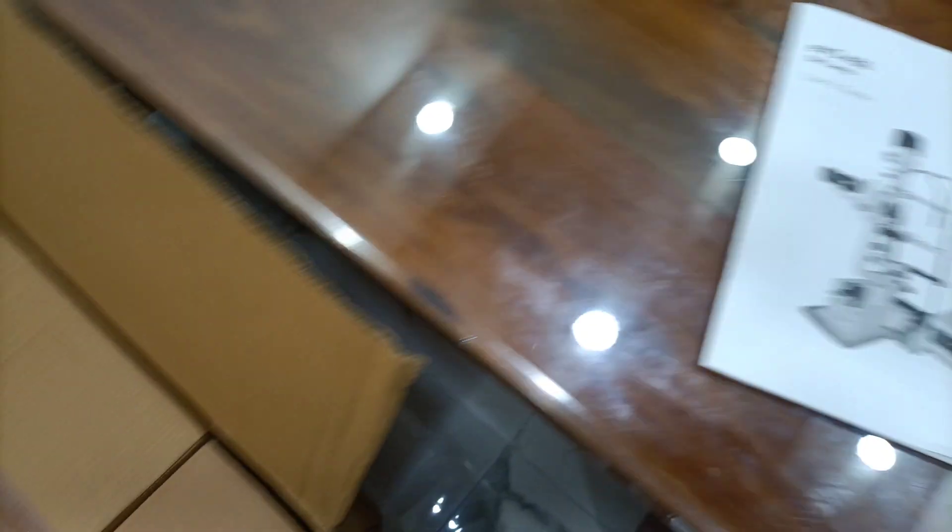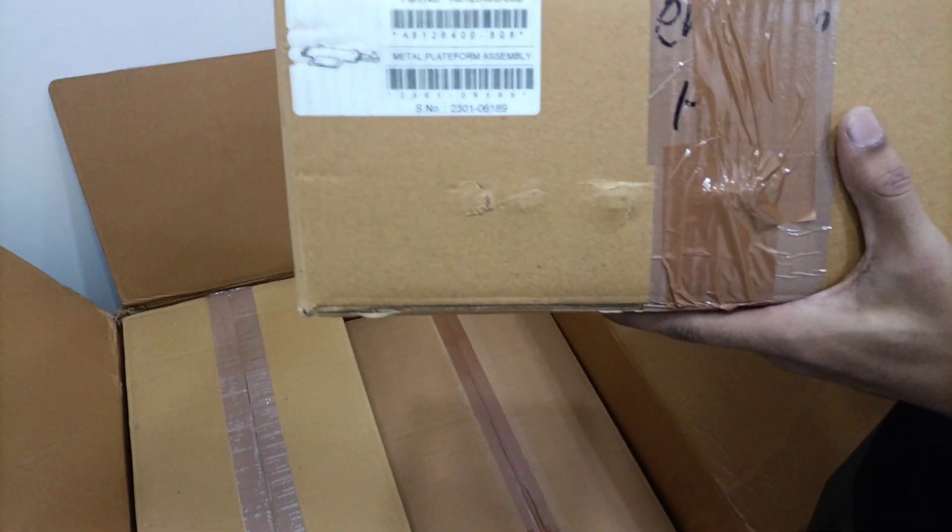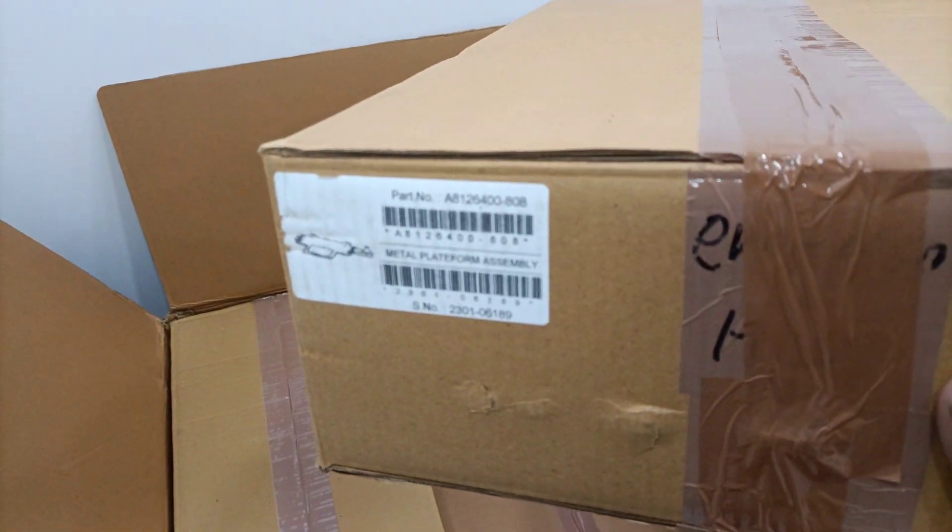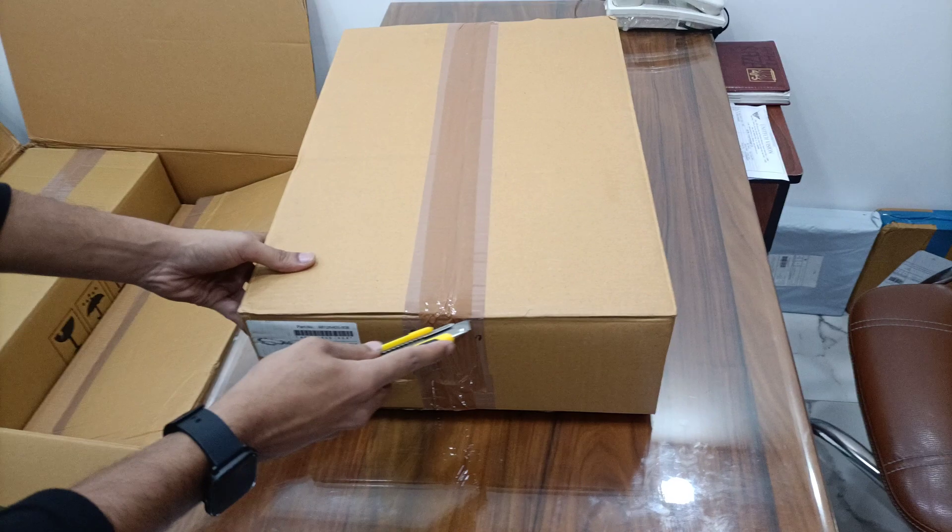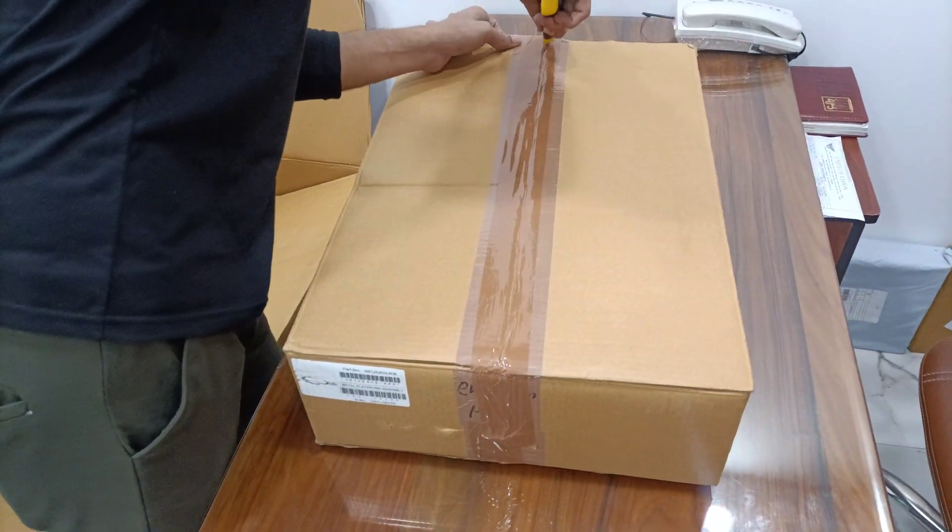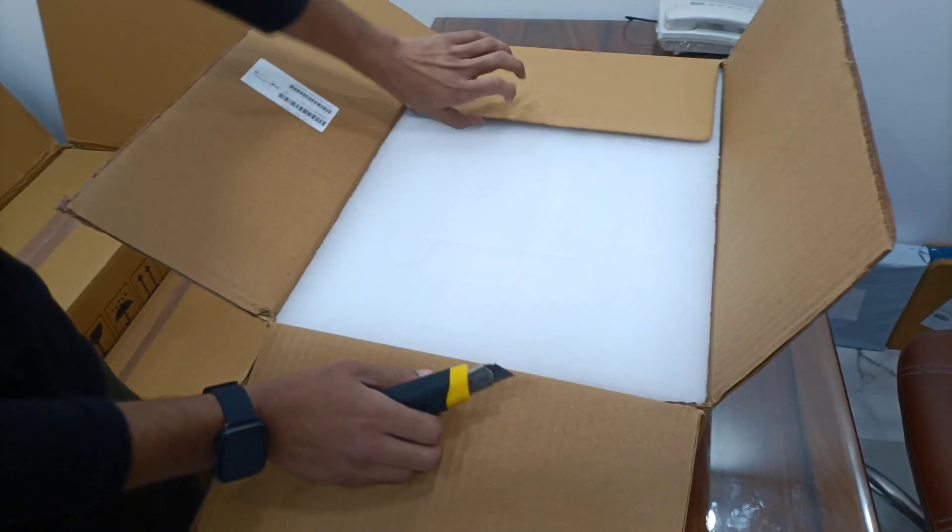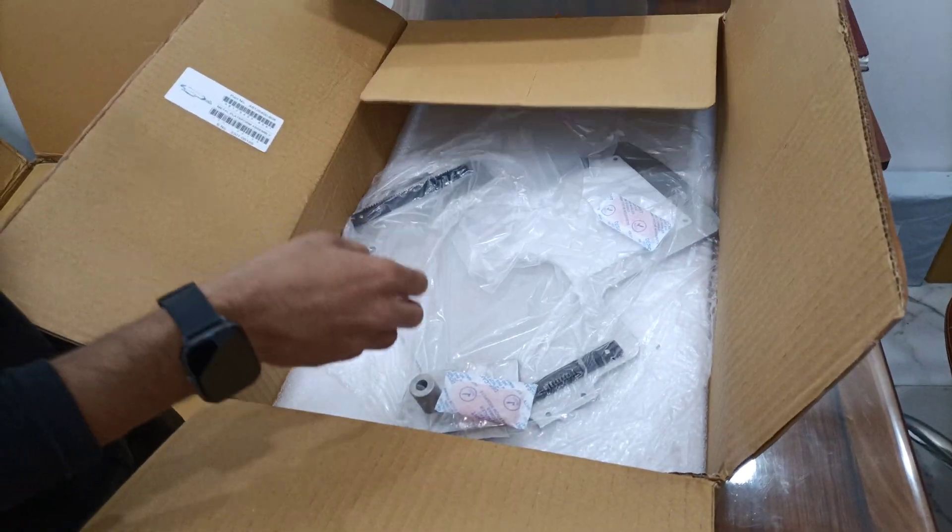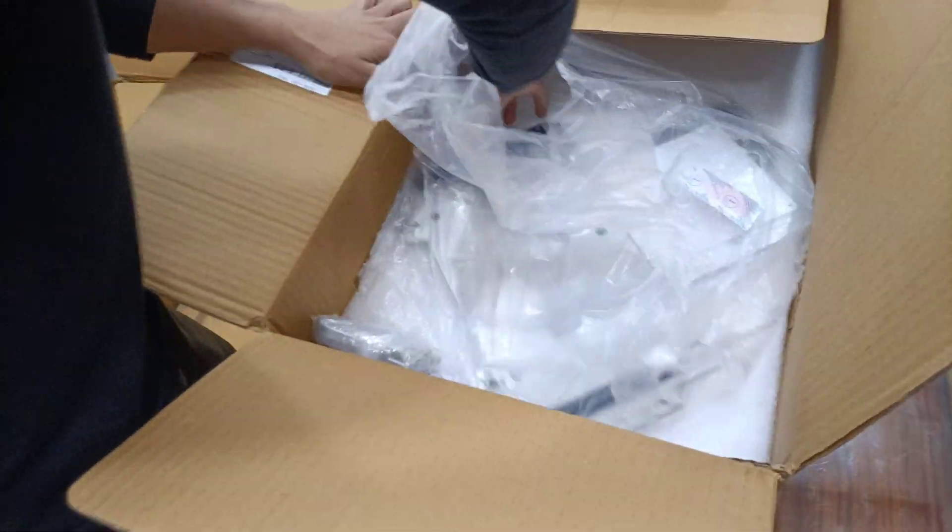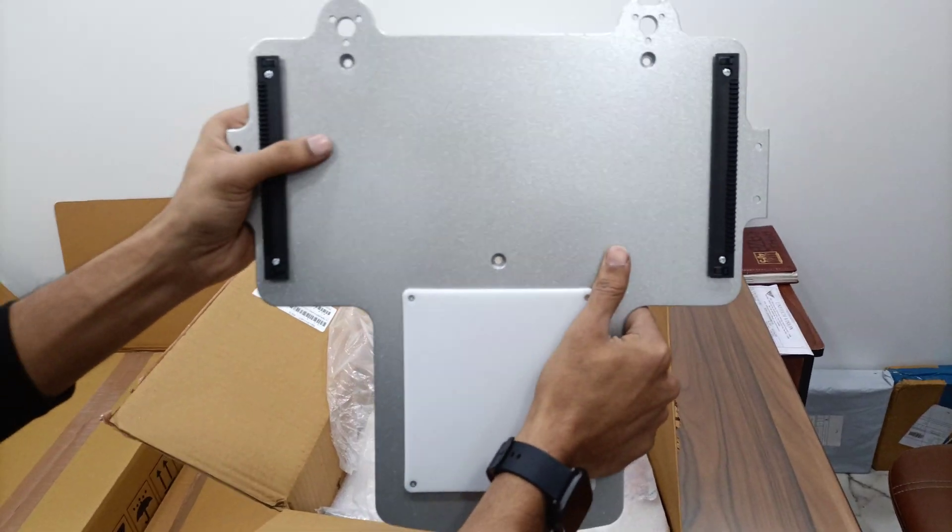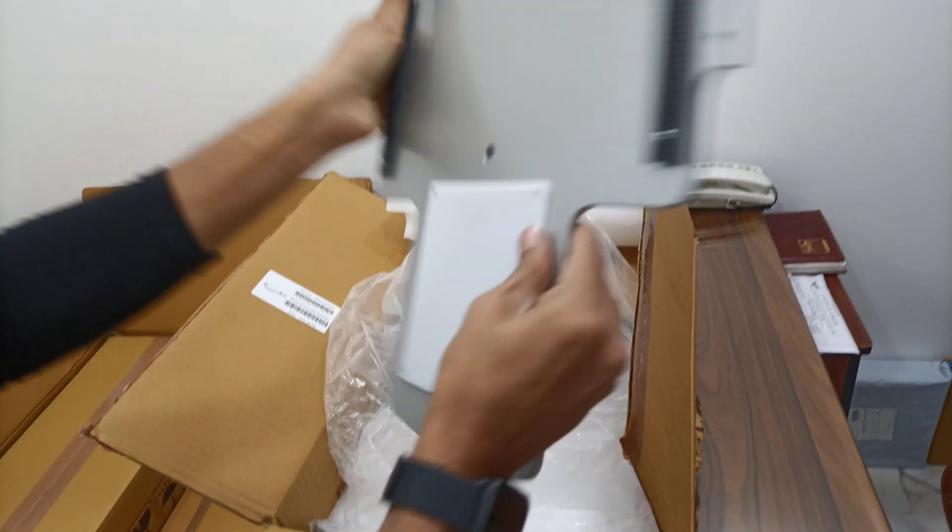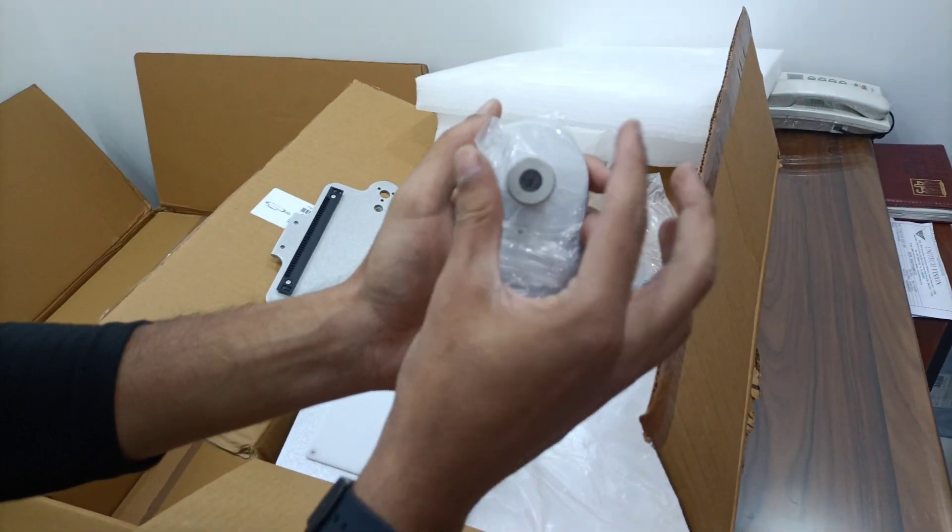And here are four boxes. Like one box only for base plate. The base plate is very heavy, good quality for transformer. You can put and fix the transformer here.